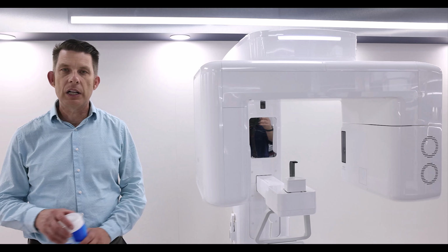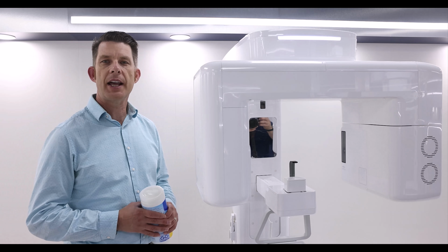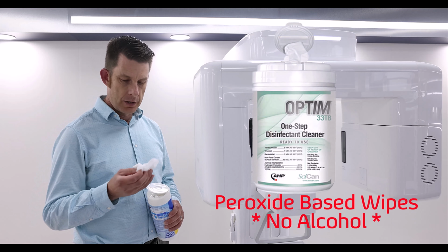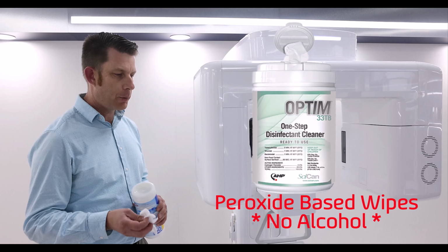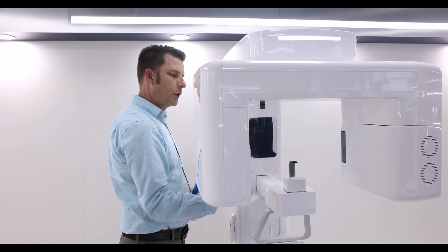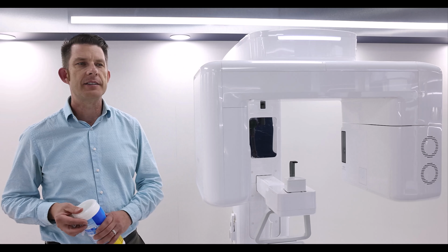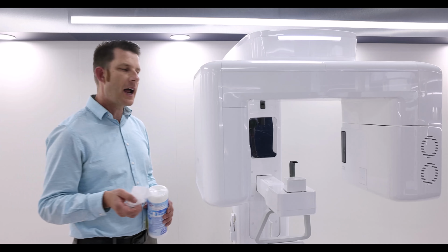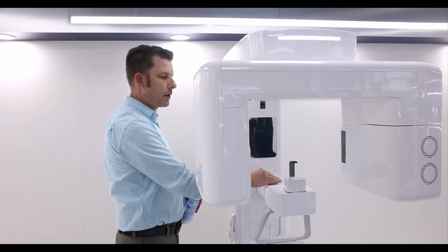Let's talk about cleaning and care. You want to use a hydrogen peroxide based cleaner or wipe. I'm going to go ahead and wipe down any areas with my wipe. We're going to let that set per the manufacturer's recommended time. Come back with a dry, clean cloth and wipe down any excess.